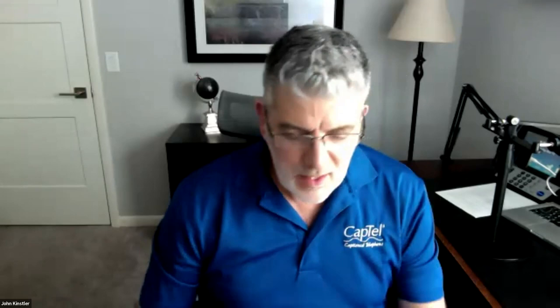Let me just wrap up here. It's really a simple process — one of our favorite features that everybody loves to use. Especially for those who have memory issues or mobility issues and can't push on those buttons — it's really a nice feature to have. We'll take this time now for any questions. I'll have Melissa take over.